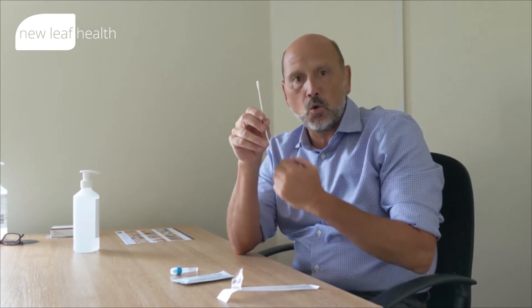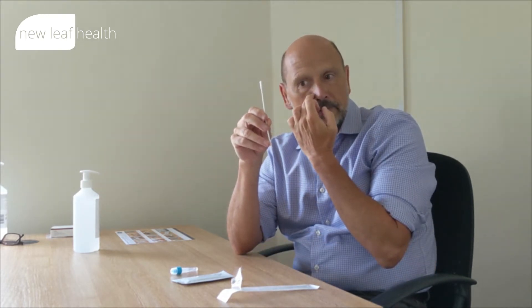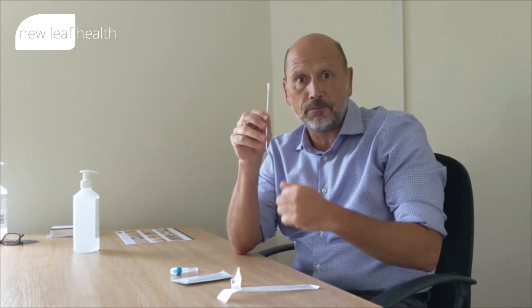Simple process of opening up the wrappers — I'm sure we've all done plenty of these in our time. Pick up the swab. This time around, we're only inserting the swab into the anterior nares, which is the flared part of the nostril.